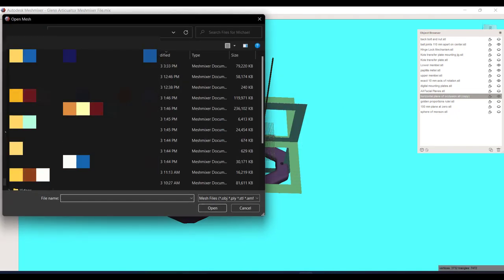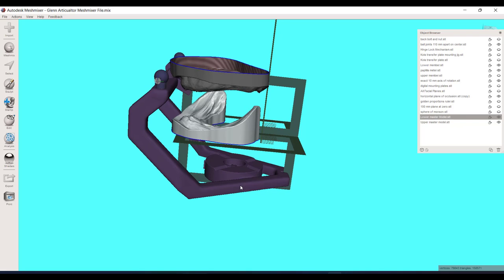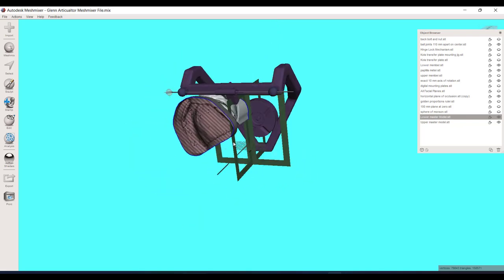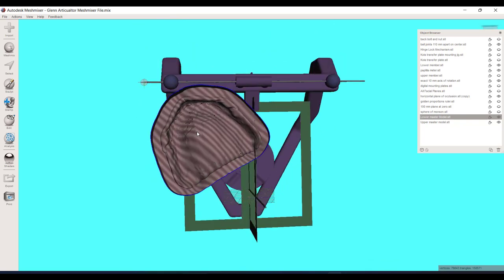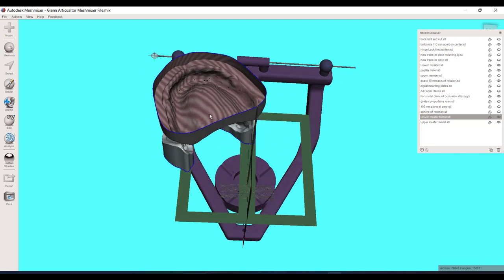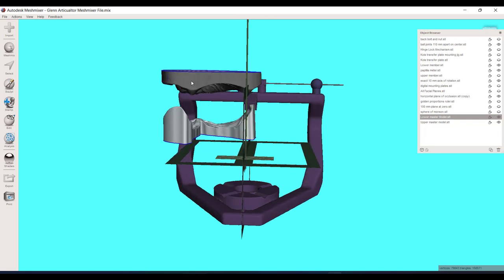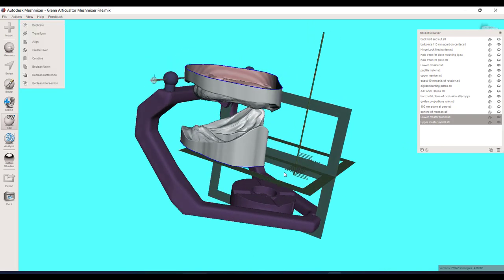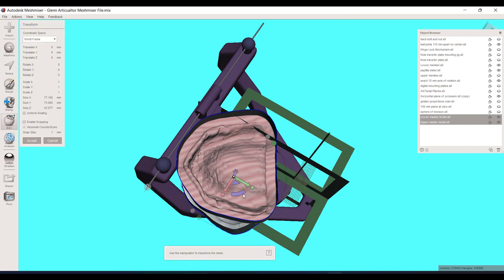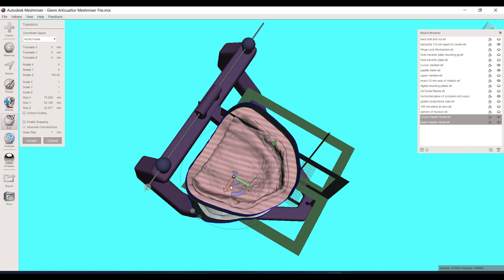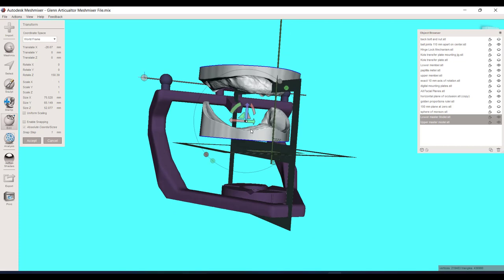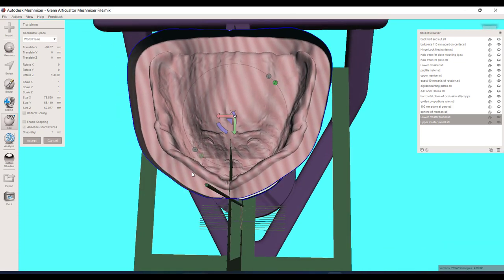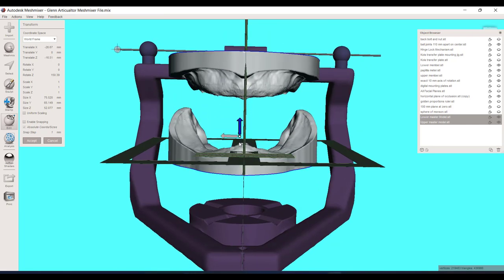When I bring in my edentulous models, you can see they're aligned to an entirely different world framework — that's always the case, since different scanners have different output positions. To use these tools to their maximum ability, I want to bring my models to the articulator. I've pulled them both in and they're oriented to one another. I need to control-select both and move them simultaneously, otherwise you won't be able to keep the same alignment relative to one another.